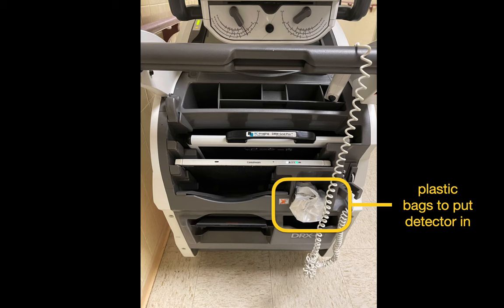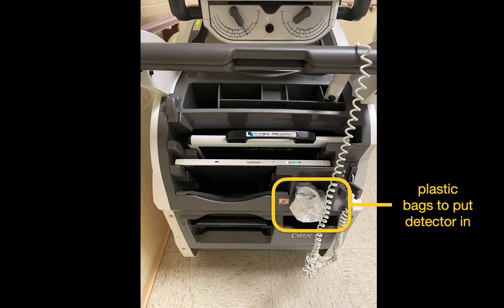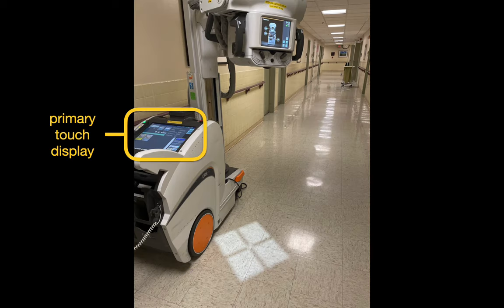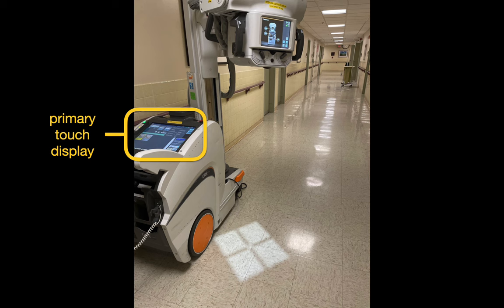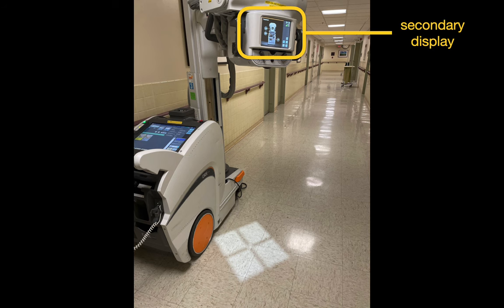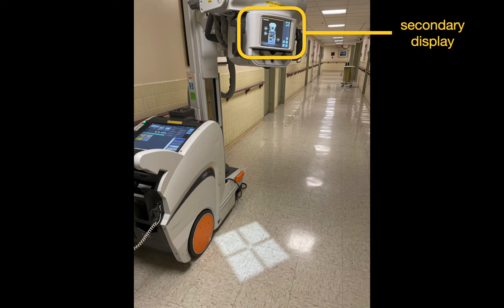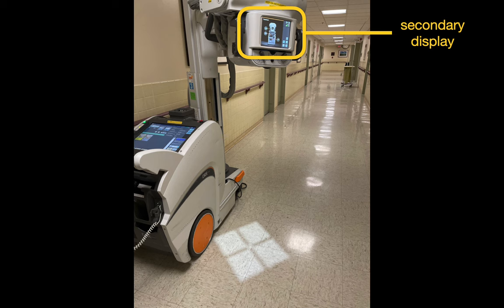Finally, a supply of plastic bags are also stored in the back for us to put the detector in so that we can minimize the spread of germs from one patient to the next. You'll also notice that in addition to the primary touch display, a secondary touch display is present on the x-ray tube head, which duplicates many of the most important functions present on the primary touch display.